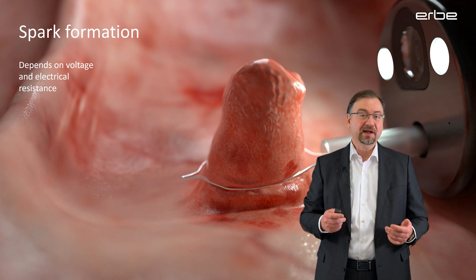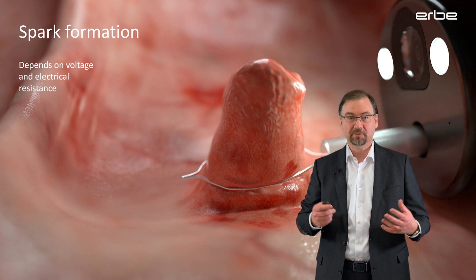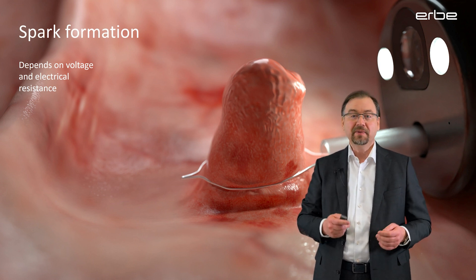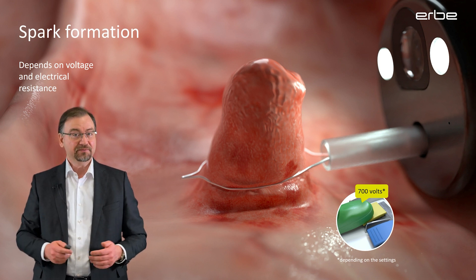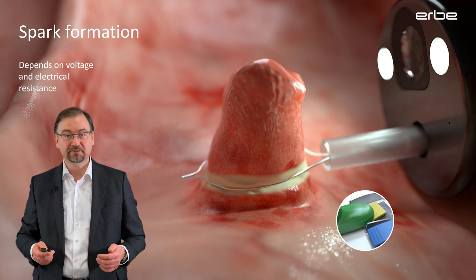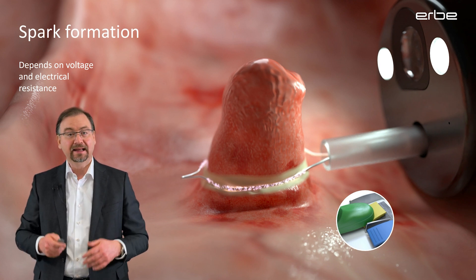The resistance itself depends on the conductivity of the tissue and on the diameter of the contact surface. Especially with snares, where the contact surface is rather big, the resistance is therefore often too low for an instant spark formation, and the cut can therefore be noticeably and sometimes even annoyingly delayed. You activate the instrument, the high voltage will produce electric current, the current will heat up the tissue, the tissue will coagulate and desiccate and thereby becomes less conductive, and the resistance steadily rises. Then, in the very instant when the resistance is just high enough, the sparks start to develop, and only now the electric cutting begins.